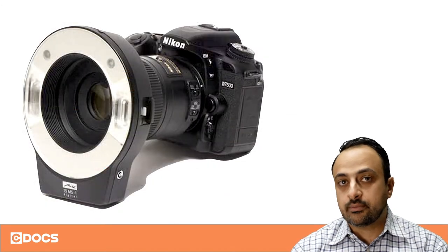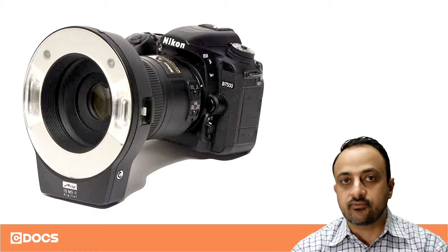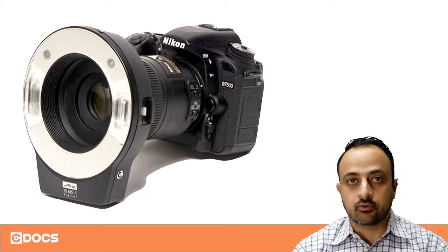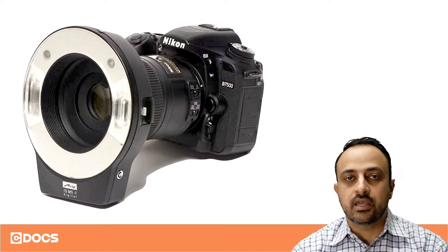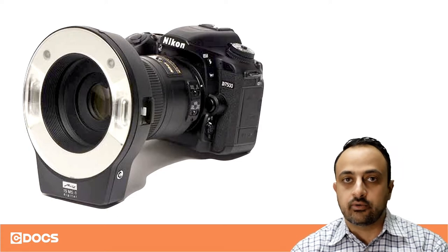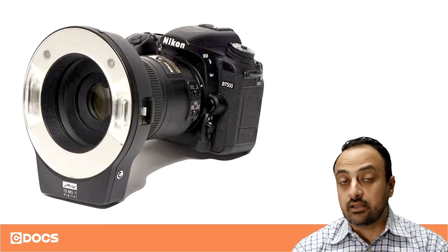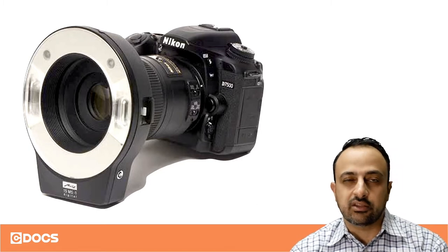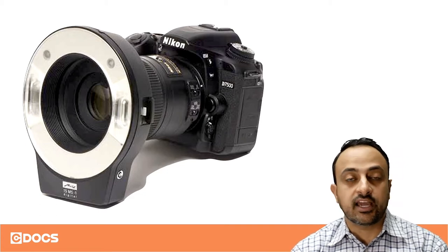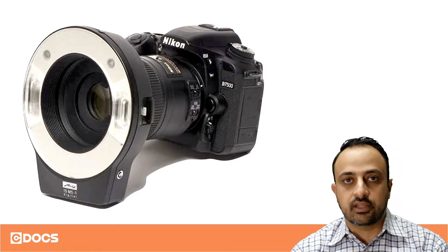Another common camera setup that we also have in our office is what you see here — this is a ring flash. It's a very similar setup: in this case a Nikon camera body with a 100 millimeter macro lens, but now the light source is a ring flash directly around the lens. This makes it a lot easier for your team members to take photos, makes it a lot lighter, and it's easier to use. The photo quality isn't as great as something with a twin flash with diffusers, but for your everyday day-to-day images this is perfectly adequate.